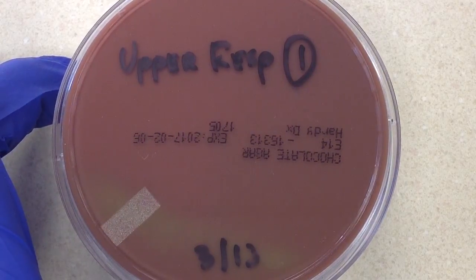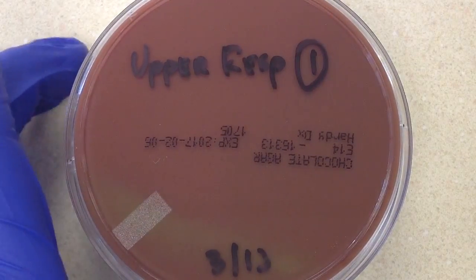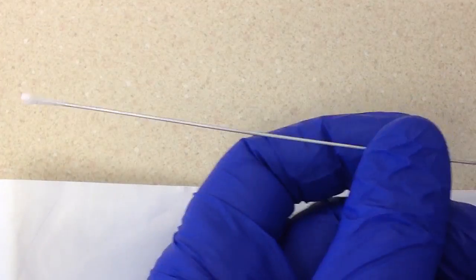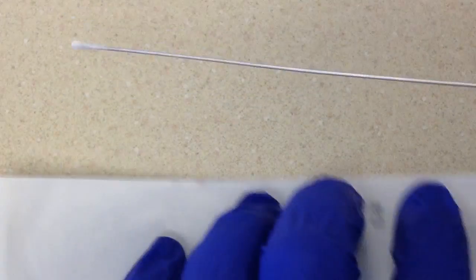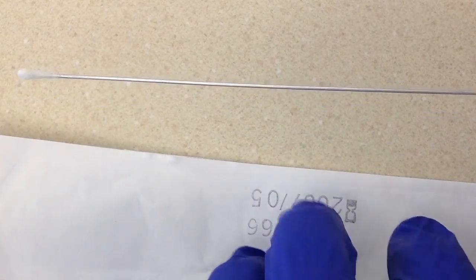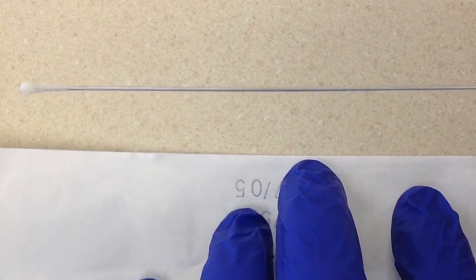This culture may be collected a couple of different ways. It may be a routine throat swab from the back of the throat, or it may be by using one of these nasopharyngeal swabs. Basically, it's inserted through the nose all the way to the back of the nasal cavity, where the specimen is collected. I remember in college our professor made us do this on each other — it's a very strange sensation.